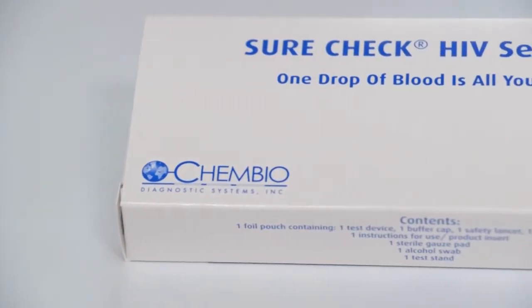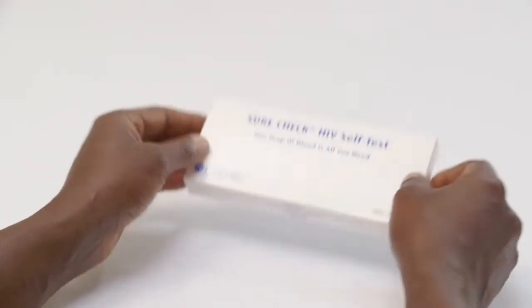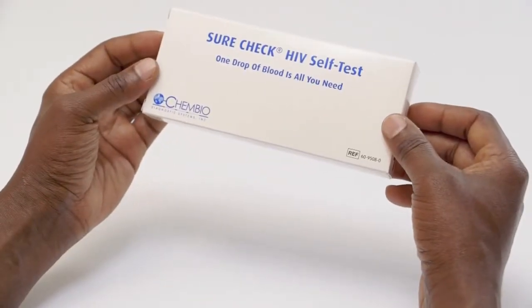This video is to show you how to use the SureCheck HIV self-test. This test is not intended for those who are HIV positive.